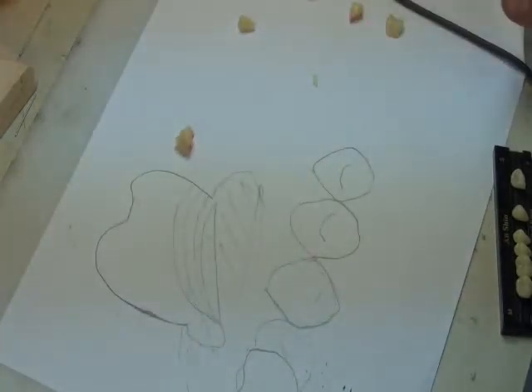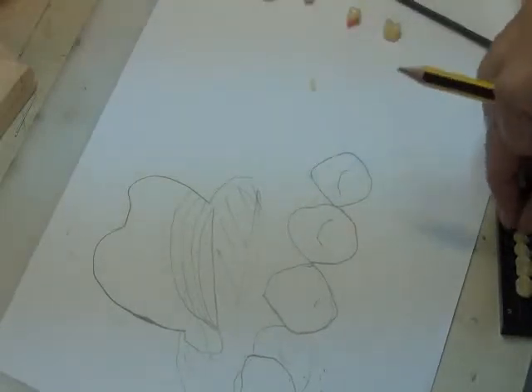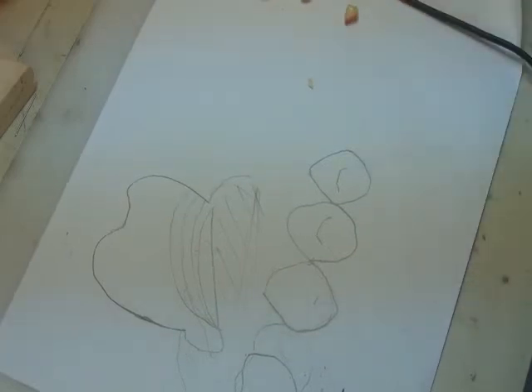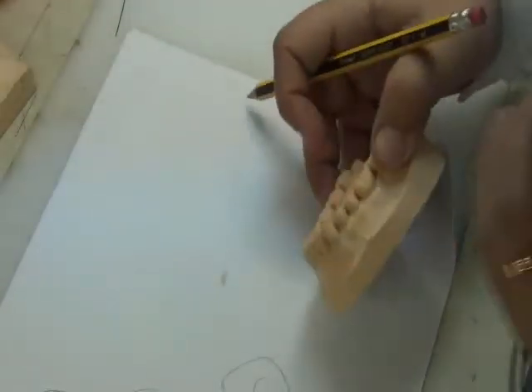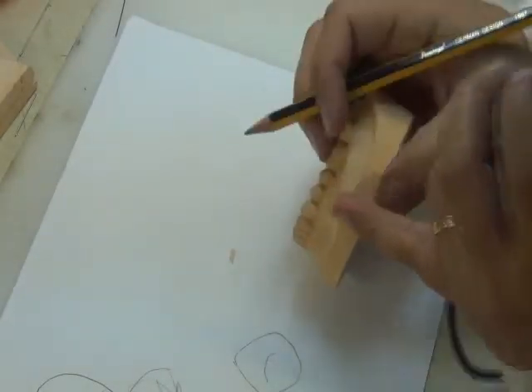Okay. So we want to set teeth. We need to select their size. We need to select their form. And we need to use the opposing arch. Why do we need to use the opposing arch? Because of the occlusal table. Excellent. So remember that we have selected the mesial distal width, okay? So we selected the shape of the tooth. We selected the form of the tooth buccally. We now know the gingival, occlusal height of the tooth.